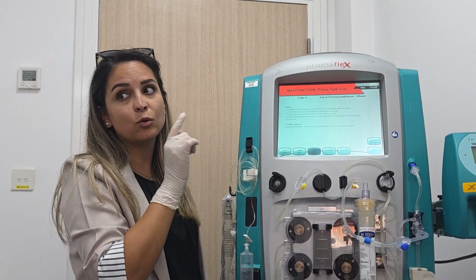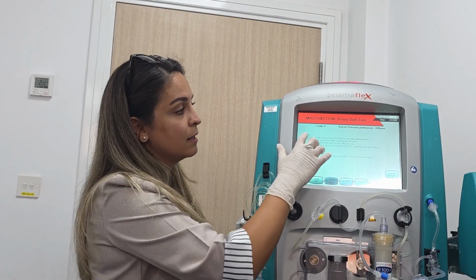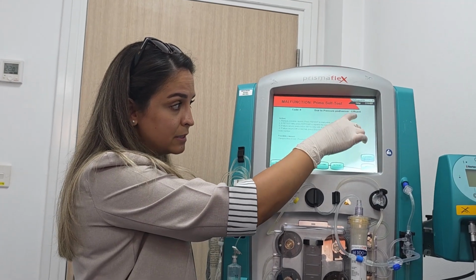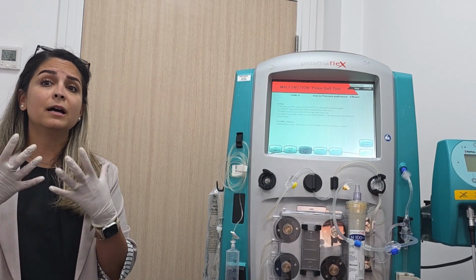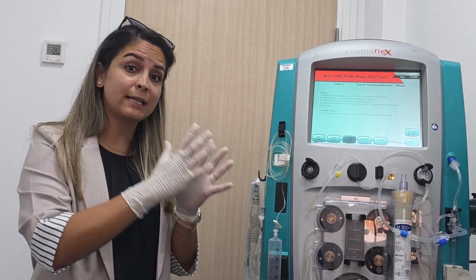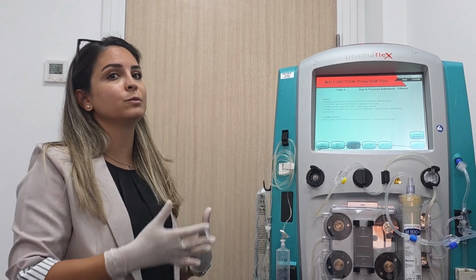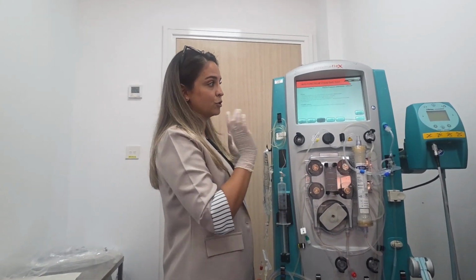So you can try with a new set to see if it is a problem from the set or a problem from the machine. Now, if with a new set I'm having the same alarm about effluent, then disconnect and inform that there is a problem with the machine. The idea is we need to try one time, twice, a third time, as much as we can with the same set. Then I might try with a new set before I inform that there is a problem with the machine itself. Maybe it's just repriming. There are still more air bubbles in the set, so we need to reprime the set again. So I will go with the first option, the machine set.